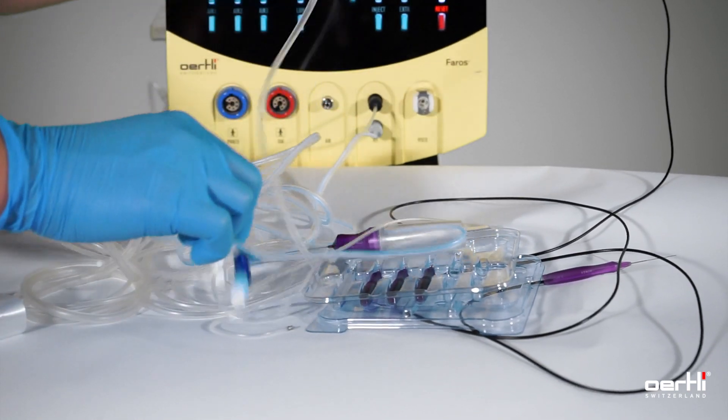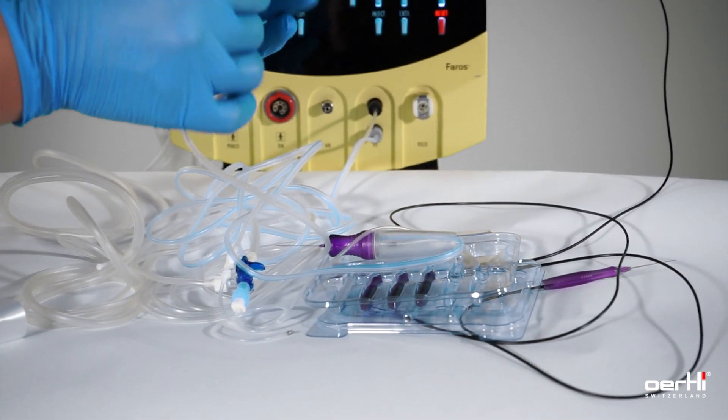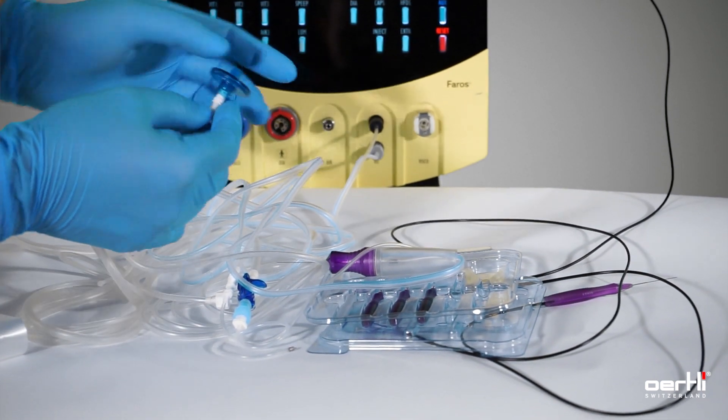On the device side, the final step, connect the filter with the air connector.